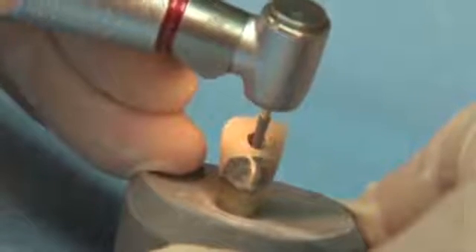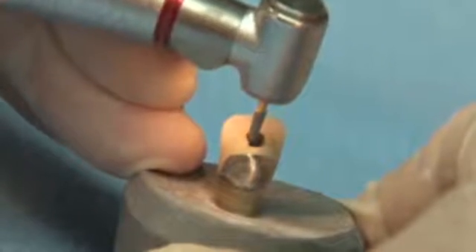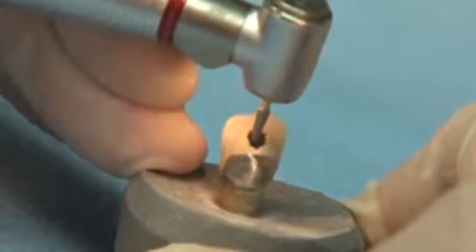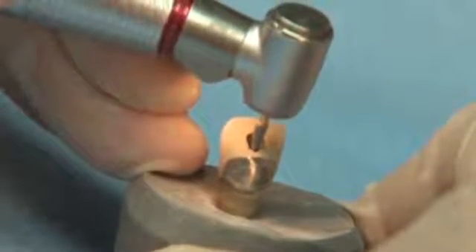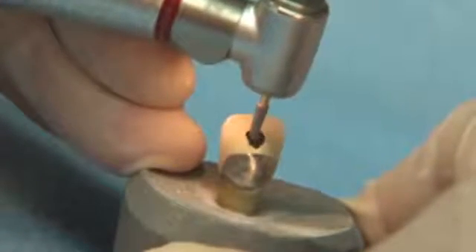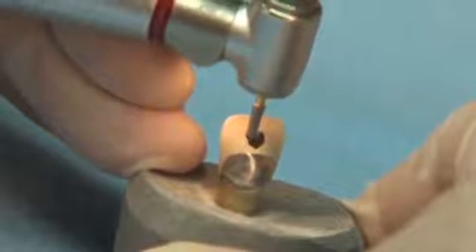The Great White Gold Series is the number one selling endodontic access burr worldwide and continues to be the only operative carbide burr to receive the prestigious five-star award from Reality Publishing Company.